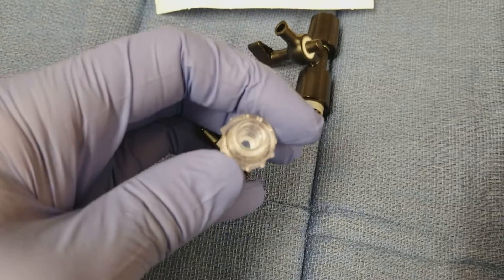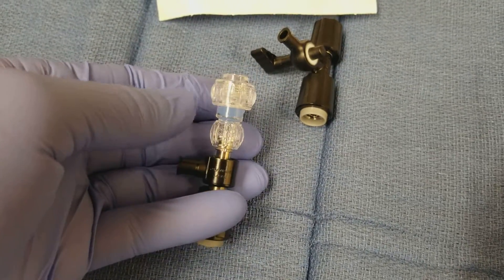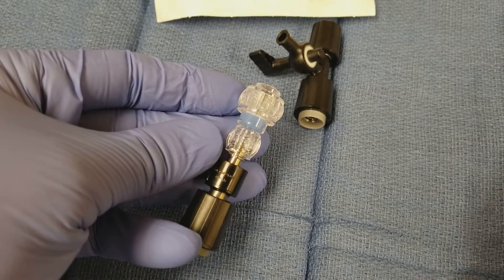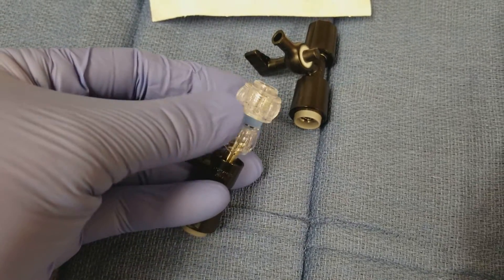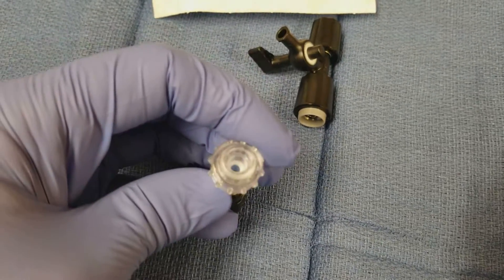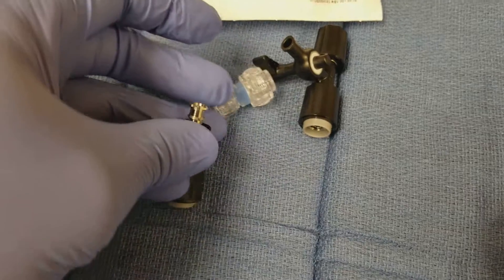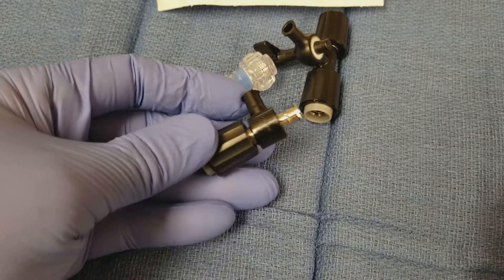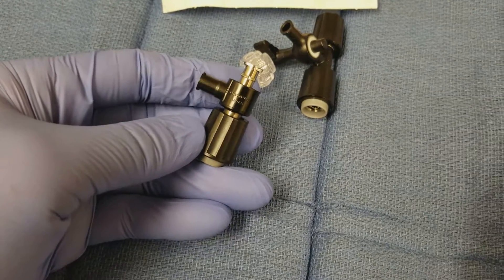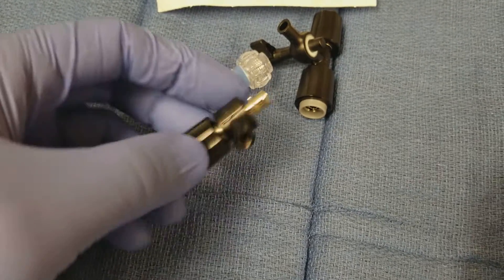Basically, efficiency. And also, you're not spraying everywhere. When you tighten it, you can still move the instrument in and out through the working channel without any leakage. Truly, this is the way to go. If you haven't tried it, I implore you — check it out and get your hospital or surgery center to switch over to this little device right here.